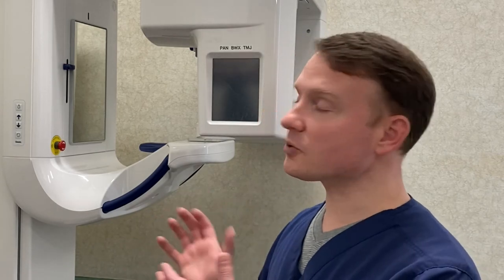If you have a big cavity, we'll be able to see it on this type of image. But if you have smaller cavities, we may not be able to determine that. So we can't just use this x-ray to say yes, you've got small cavities in between these teeth — it's not going to work that way. The only thing we're really going to see are bigger items of concern. That is what this x-ray is intended for.